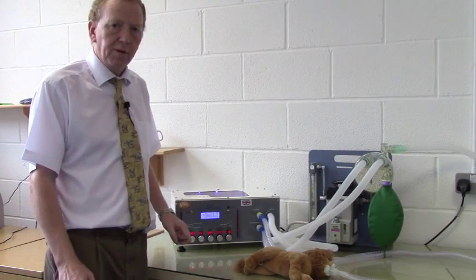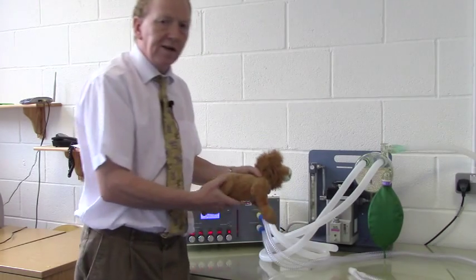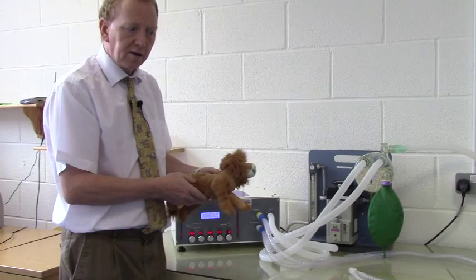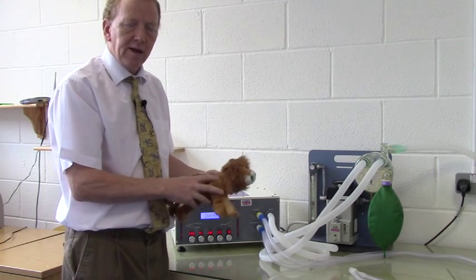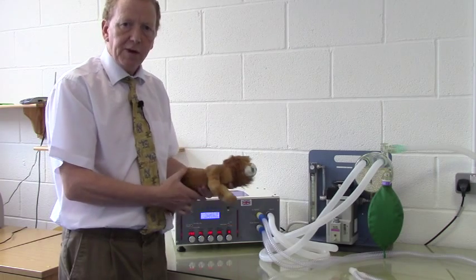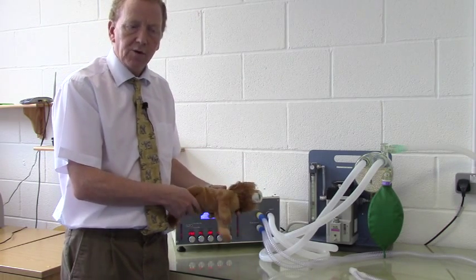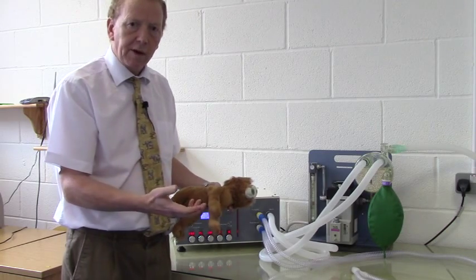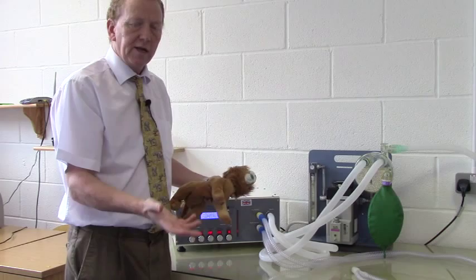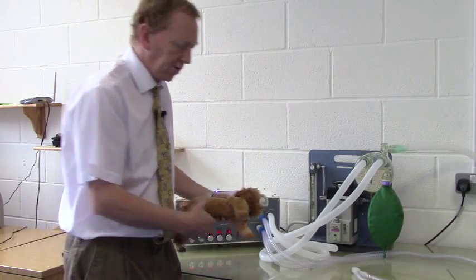So, for volume cycling mode — here's our patient. We recognise Leo from previous videos. Leo has an internal bag, and for the purposes of this demonstration, he has a tidal volume of 200 mils, which in practice would mean we were effectively ventilating a 20 kilogram animal. A 20 kilogram animal comes into your practice, you apply the formula 10 mils per kilo — 10 times 20 is 200 mils — so we have set a 200 mil tidal volume.